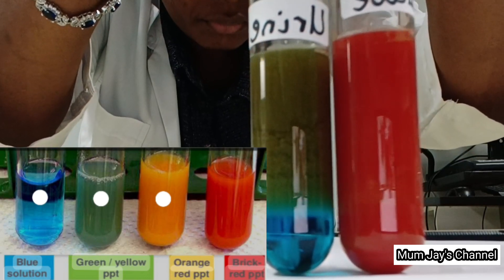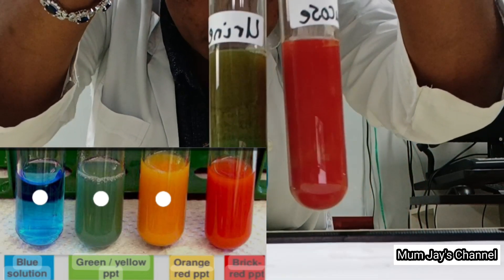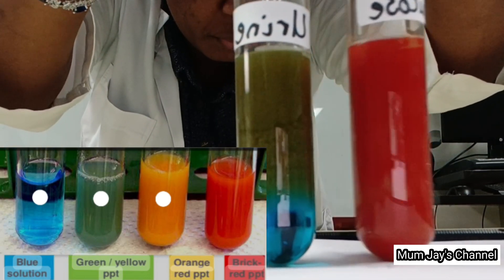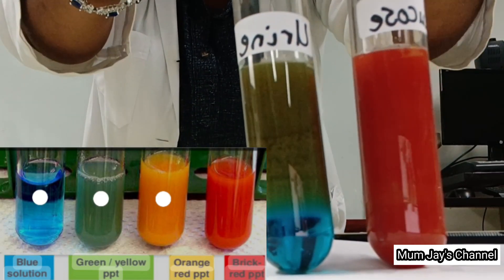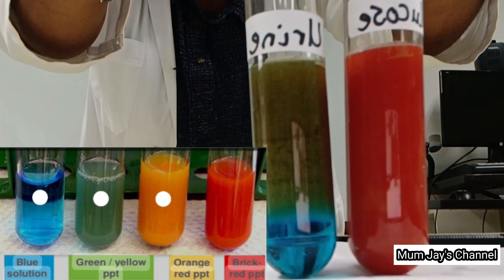From the results we got, we could conclude that there are some traces of sugars in the urine sample.